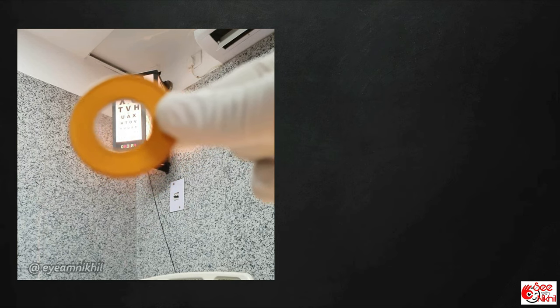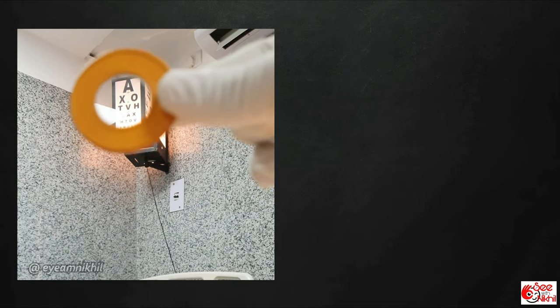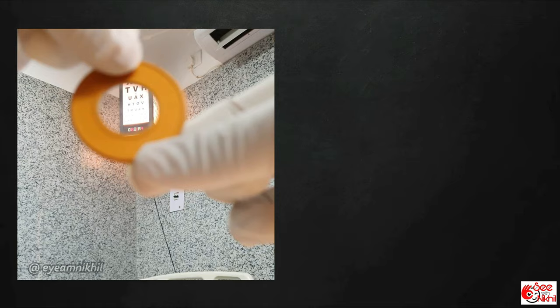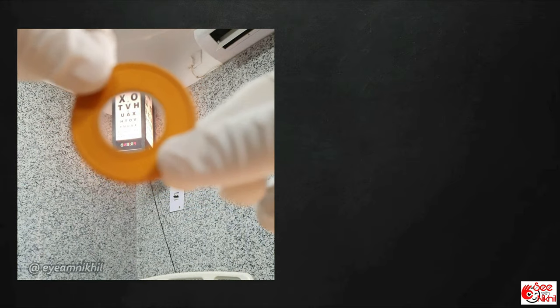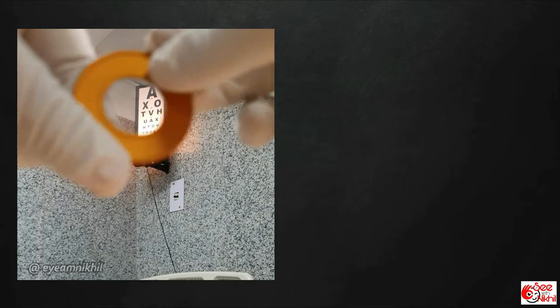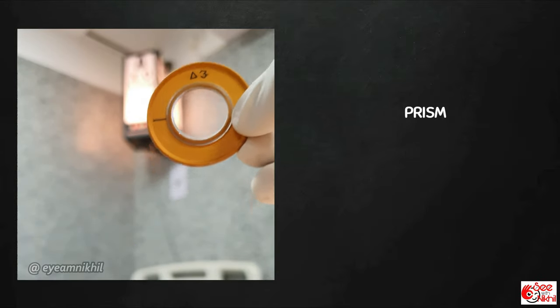And look at this lens — it is different from all the others we have seen. Here the image is displaced towards one side. There is no movement of image, and on rotation there is no distortion; rather, just the direction of displacement keeps on changing. This unique lens is a prism.